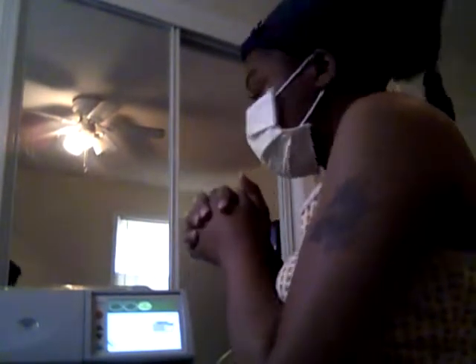Now I'm just waiting for everything to soak and be done. In a couple more seconds it'll be time to take the catheter out. I hope the TV isn't too loud in the background. This is my solution bag right here sitting on top of the scale, and then on the sides I can hang more solution bags. That looks like a better view. It is time to take the catheter out — give it one more good soak.